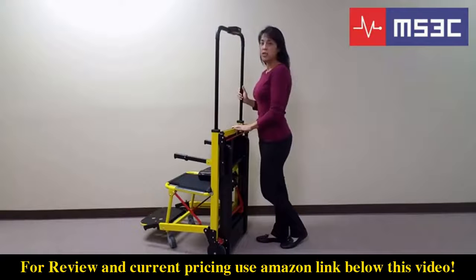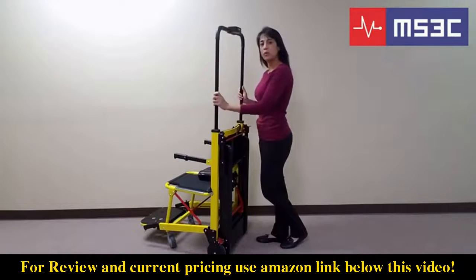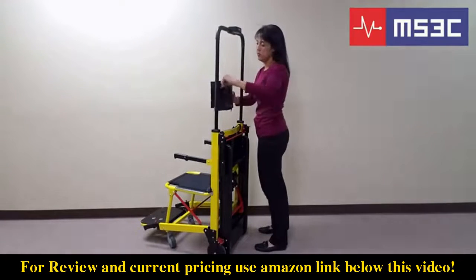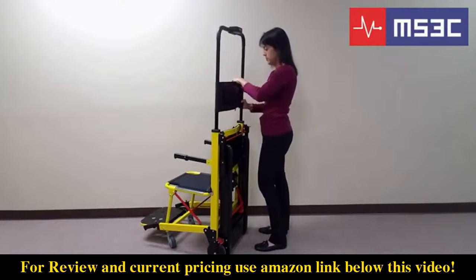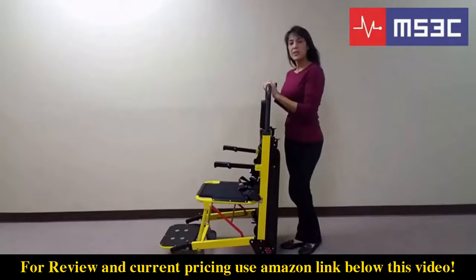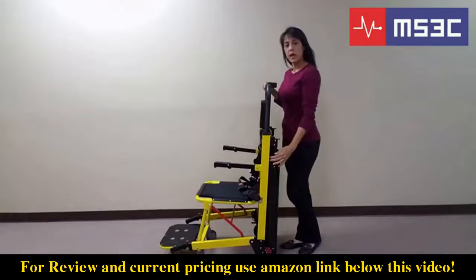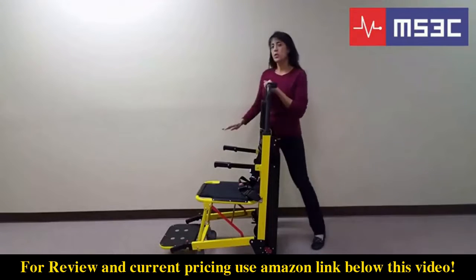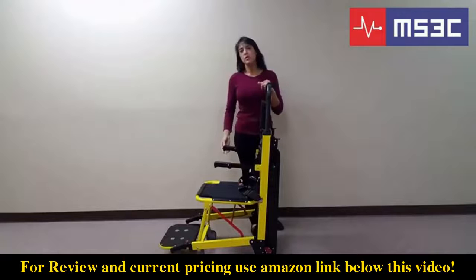Next, you will need to attach the back and head support around the pole uprights. This chair comes standard with rear locking push handles. To lock the handle into place, simply raise it. To lower it, push the red unlock lever and release. This unit also comes standard with two side support handles. To lower, just simply raise up and down.